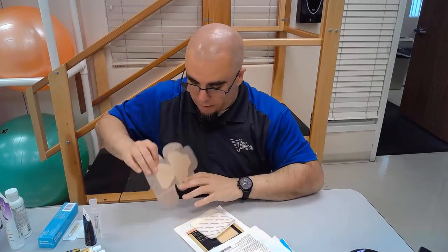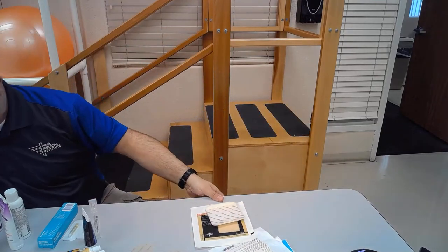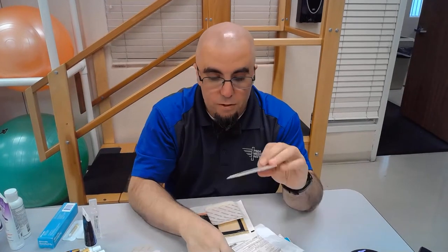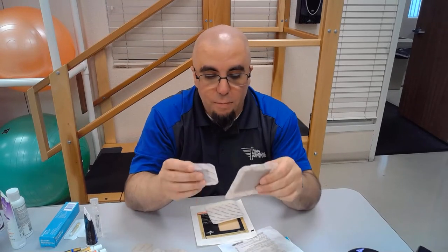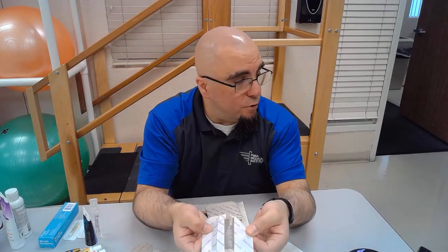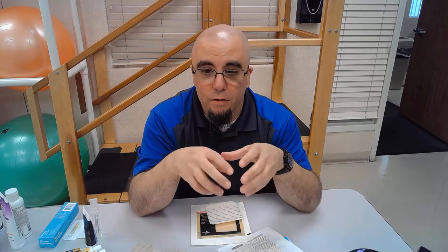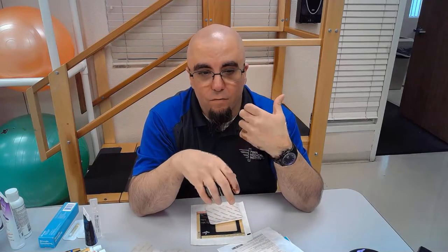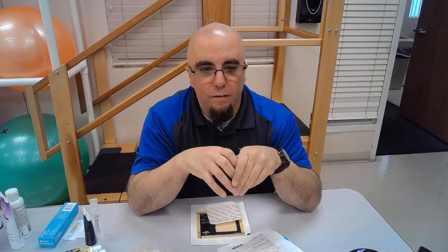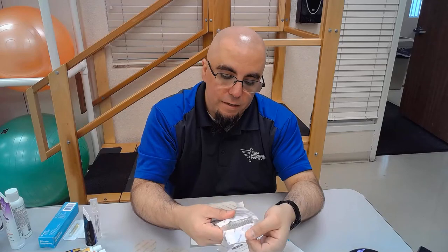There are all kinds of border gauze dressings — heel dressings, sacral dressings, long thin dressings for total knee replacements, smaller ones, and larger ones. It just depends on your needs. These gray ones are silver-impregnated. Silver has been shown to have great antimicrobial and antibacterial effects — it's actually bactericidal, so it can help kill off germs in an infected wound.